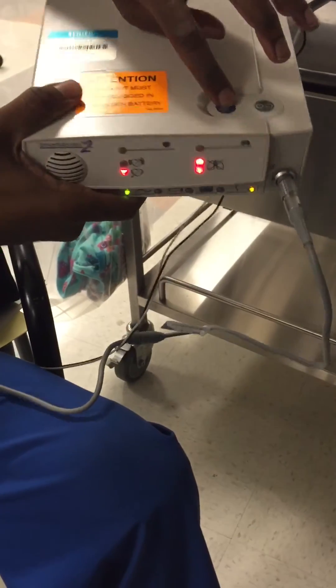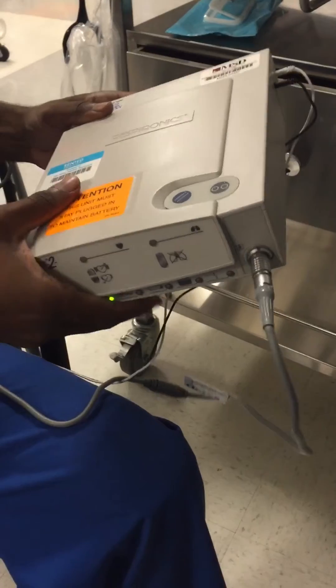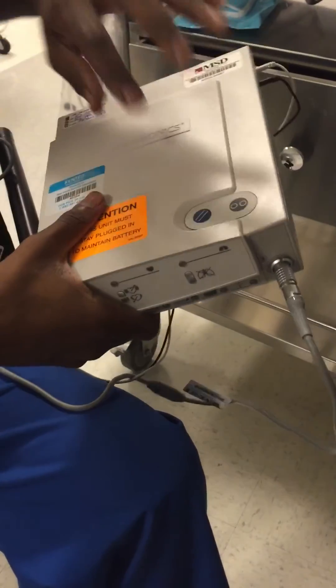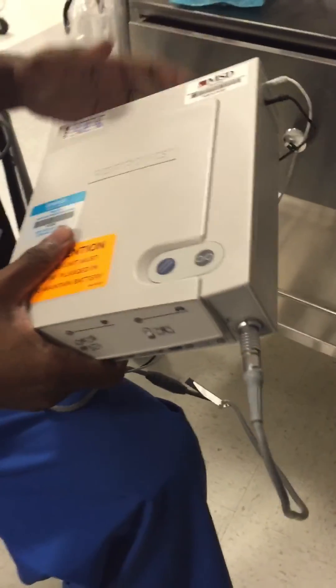And then to get rid of the lights, you get the reset light to turn it off. You hold both together — that is how you do it. You turn it off. That's how we do it.